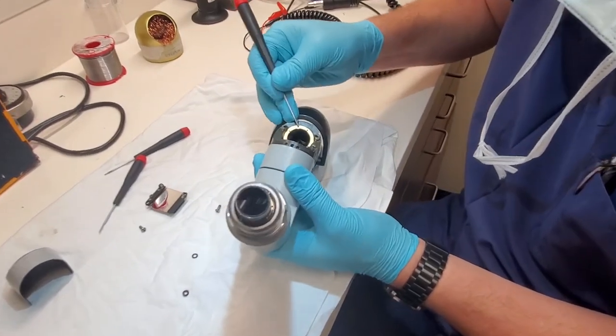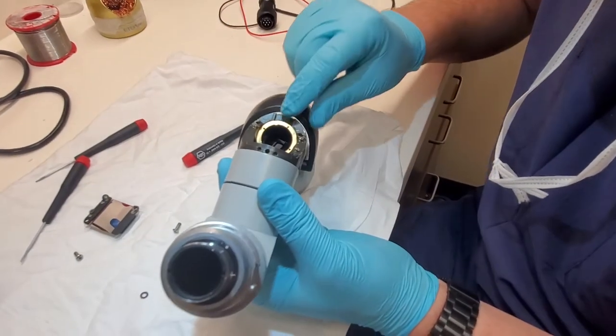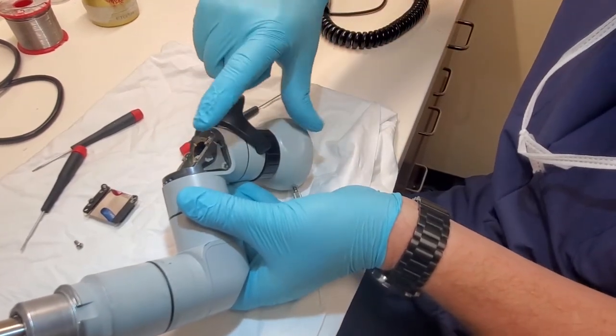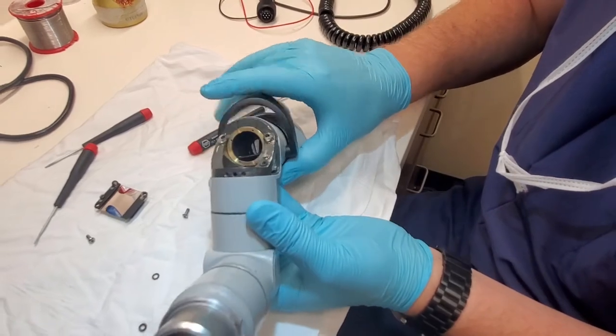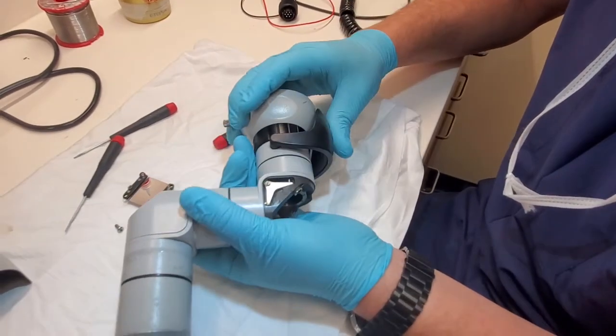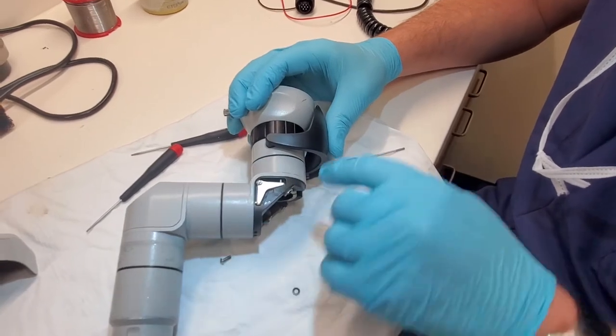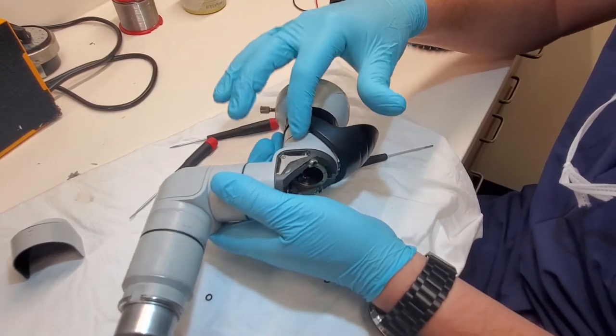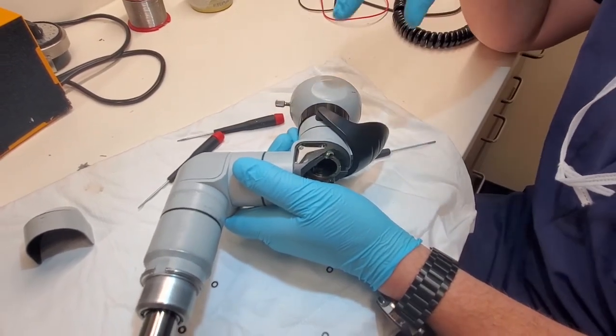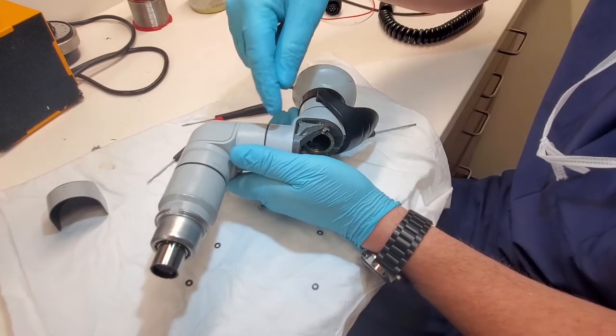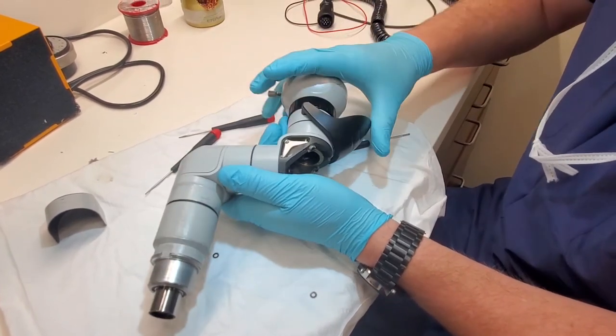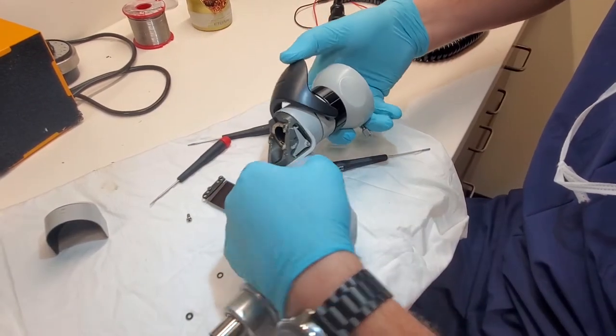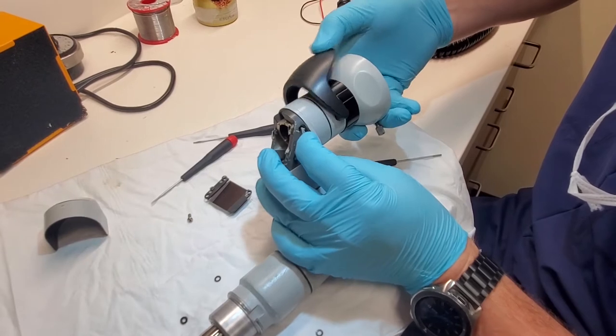This here is a spanning nut as is this one. It will adjust the tension between the pieces. This right here is your release. See how it rotates? There's some clutch discs that are made of cork and laminated steel located here, here, and here. When you depress this it relaxes on these arms on both sides.